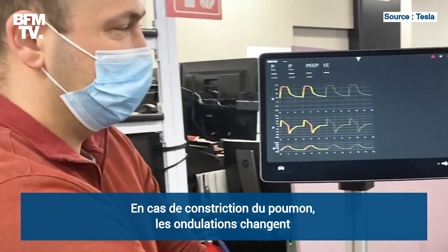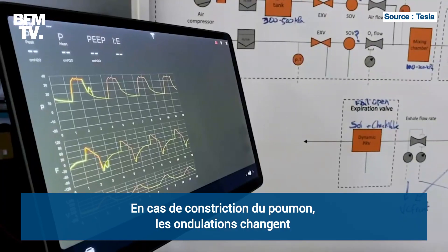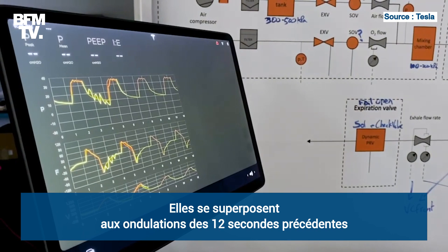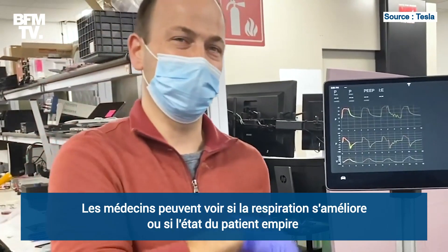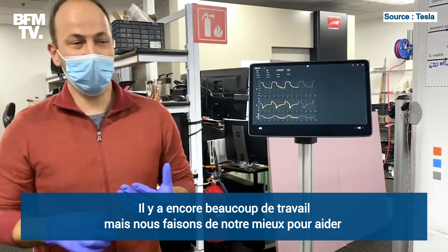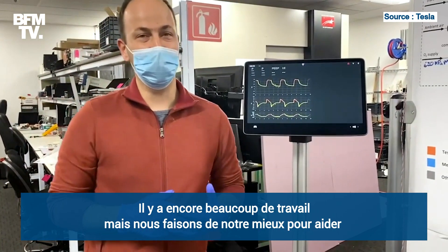Now, if something happens to the lung and constricts it, you can see the pressure waveforms change, overlaid on the history of the previous 12 seconds. That's important so a doctor can see if they're improving or something's going wrong. There's still a lot of work to do, but we're giving it our best effort to make sure we can help some people out there.